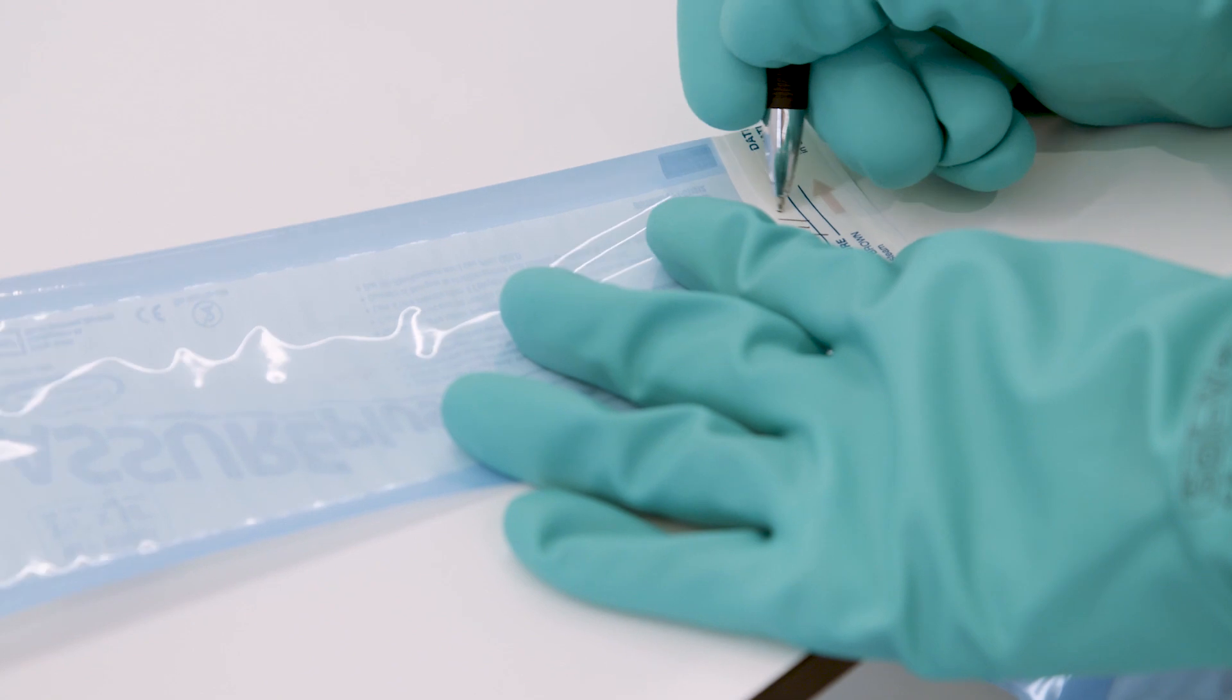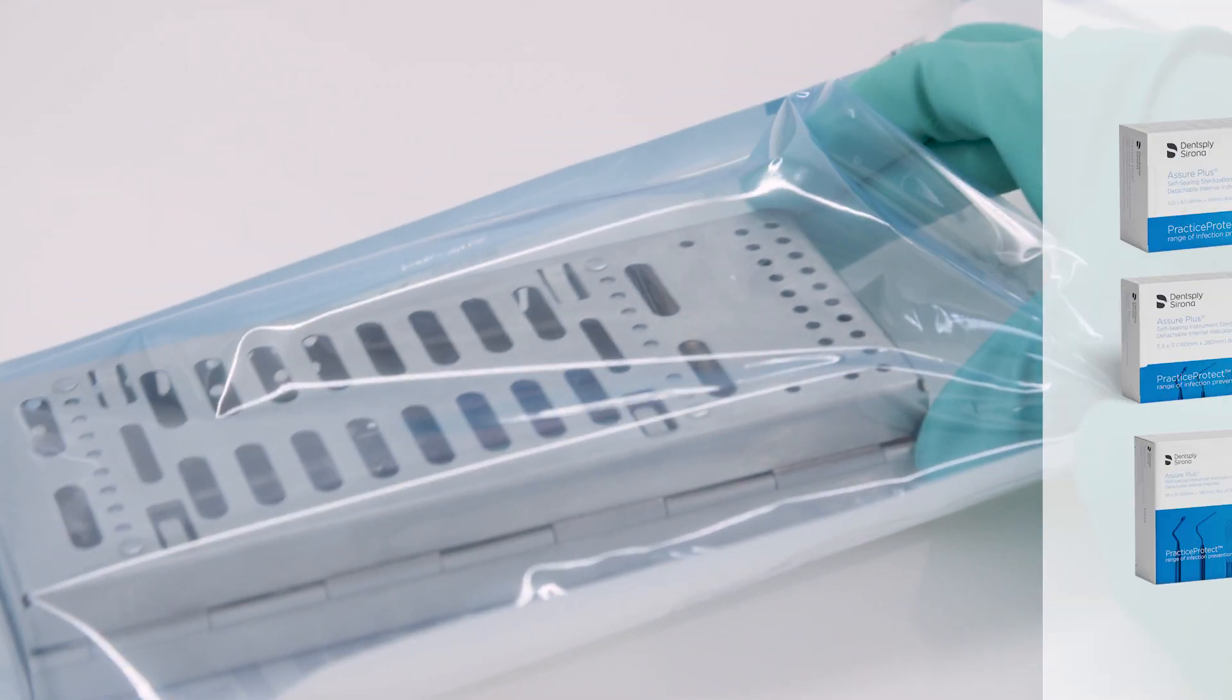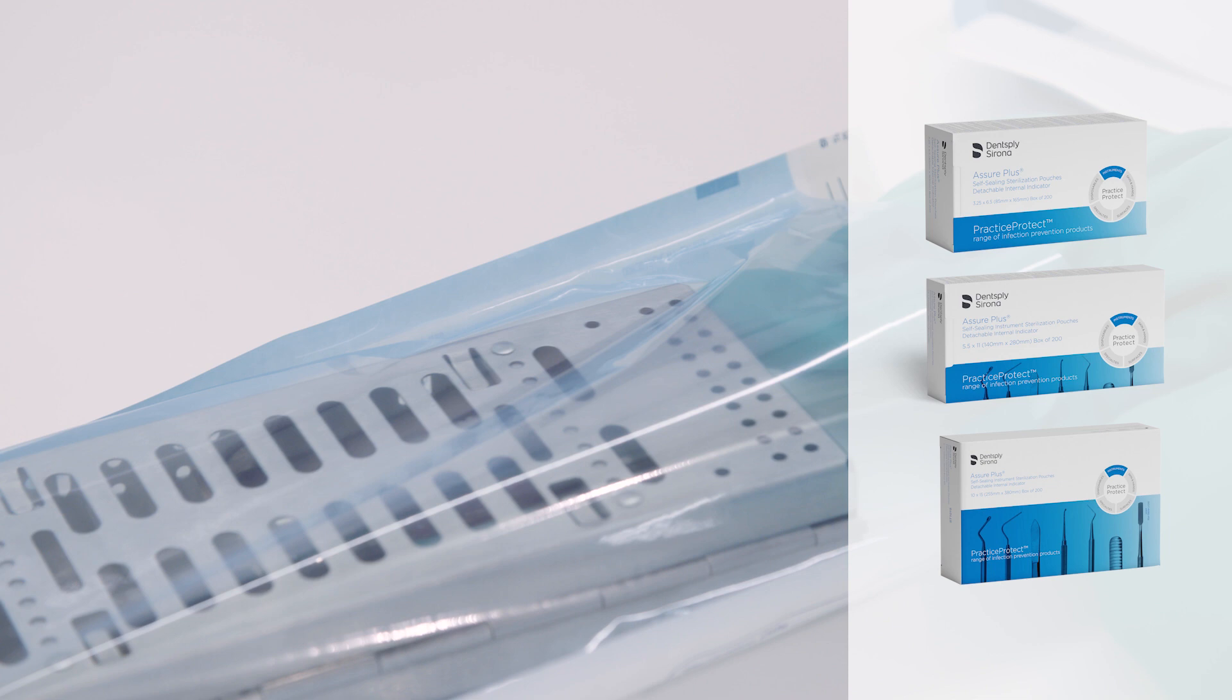Once properly dried, instruments can be packaged in the Assure Plus sterilization pouches in preparation for sterilization.